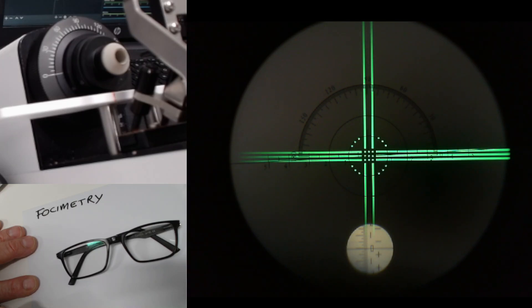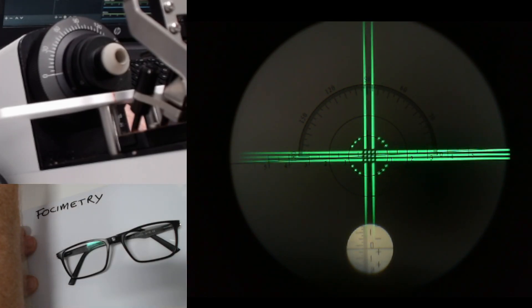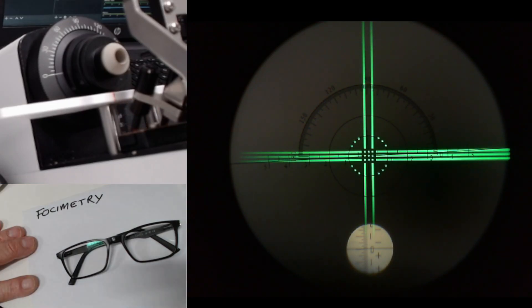I've zeroed it as best I can and if I turn the power dial a little there, you can see that it looks pretty much zeroed, pretty much calibrated. We can talk about calibration down the line as well, but we're going to keep it simple today.